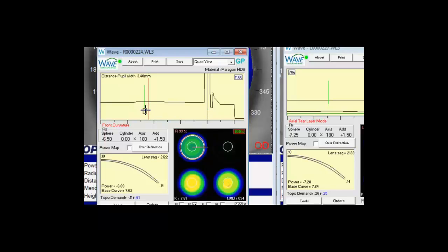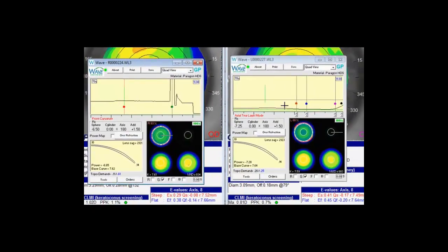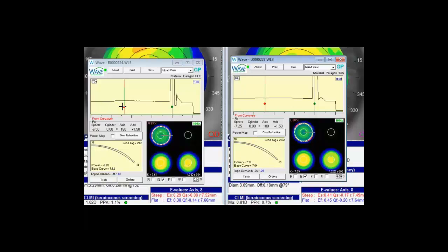We can usually just slide this in to right inside or right at the pupil line. And that usually gives us a pretty good multifocal size. If we come to the left and do the same thing here. And wave allows you to control exactly how large you want your multifocal size to be.